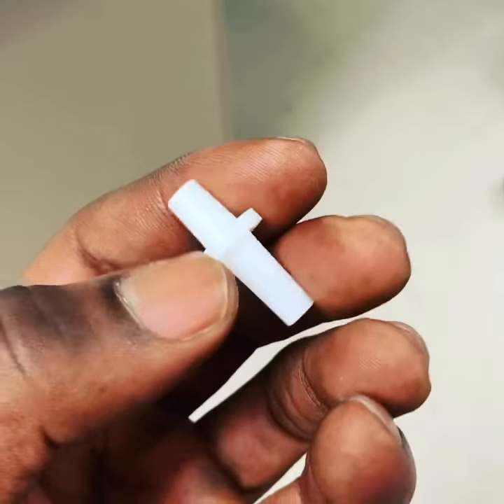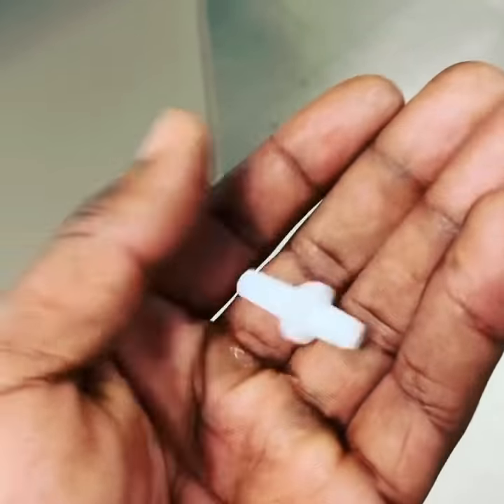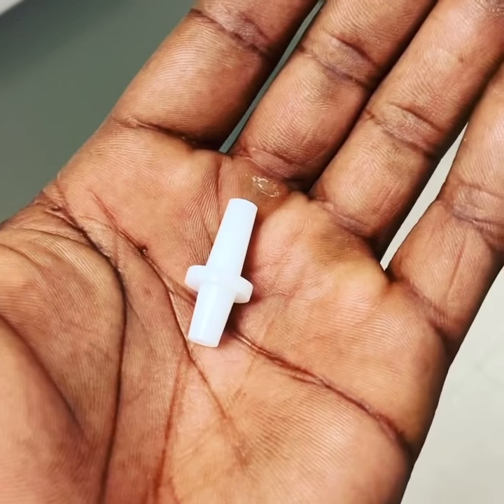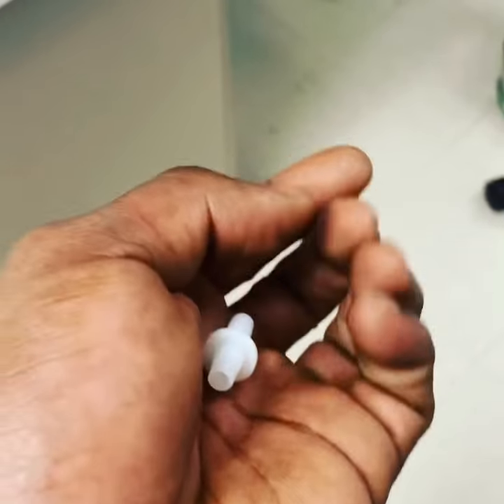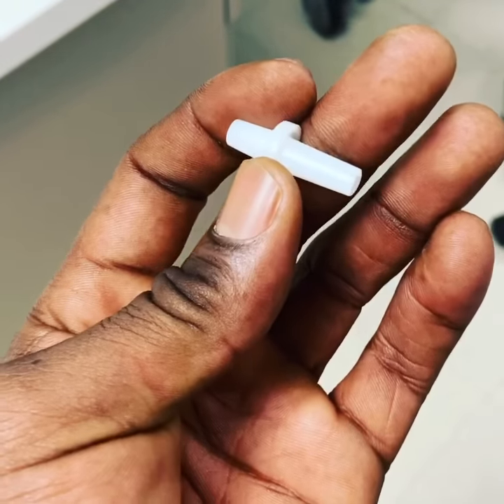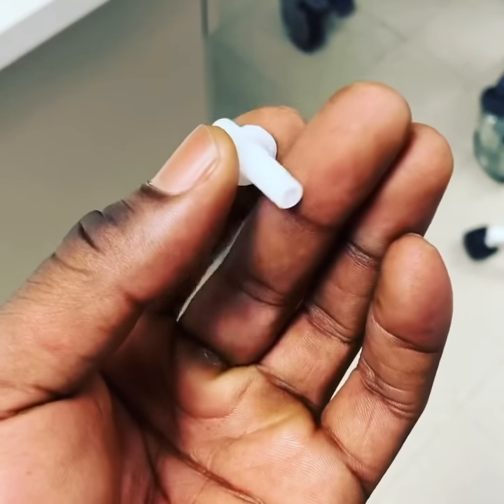Hello respiratory world. These are simple connections for extensions — they're just connected tubing. These are sometimes so evasive; sometimes we cannot find these little things. They are used as extensions for oxygen therapy. Usually we have like seven feet of tubing, and the patient wants to go to the bathroom.